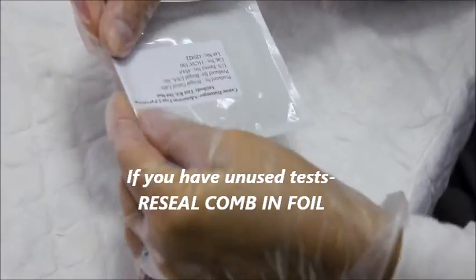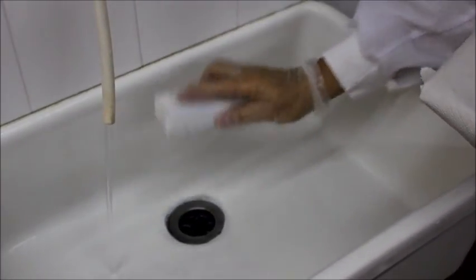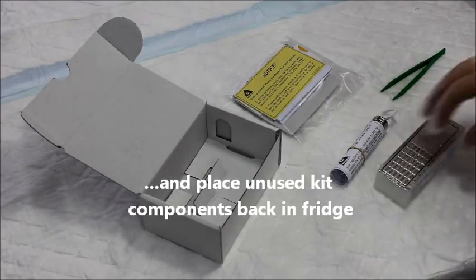Note that this interpretation is specific for the ImmunoComb canine VacciCheck antibody test kit. If you are using a different ImmunoComb pet test kit, check the interpretation specific to that kit.